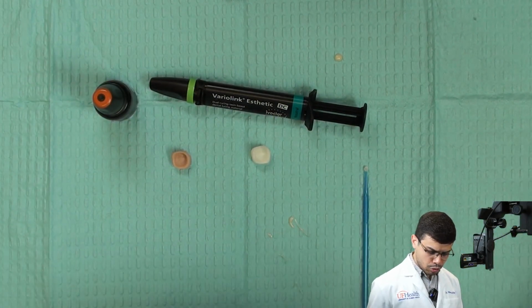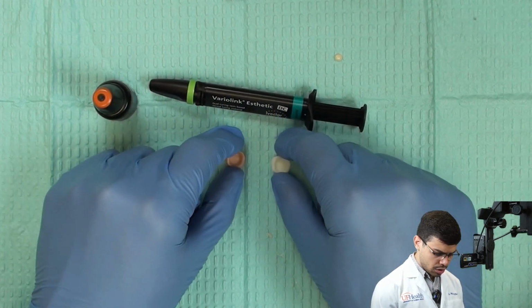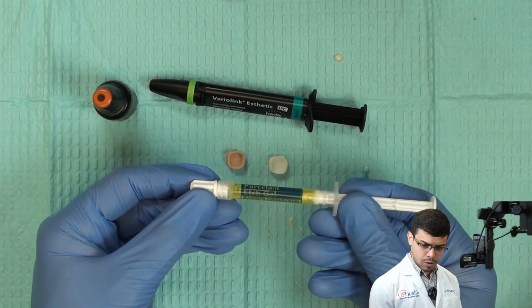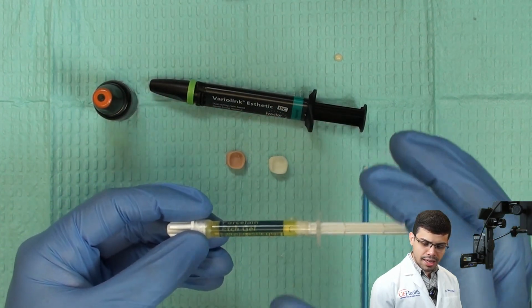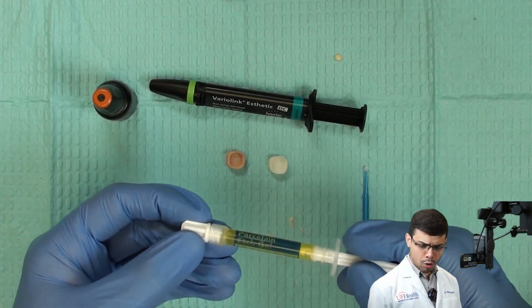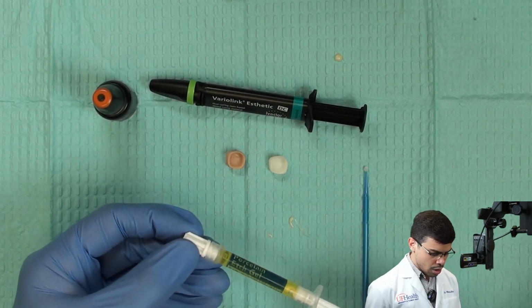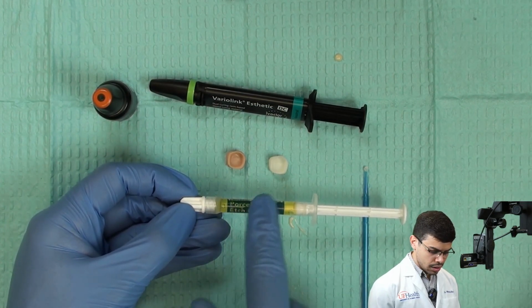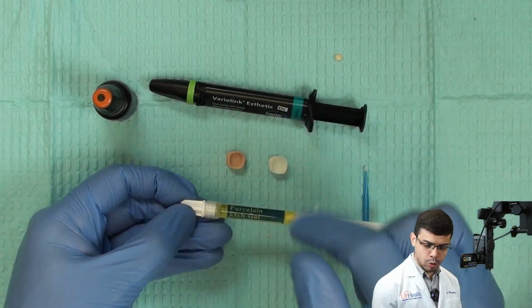Now, I also have to decide which type of surface treatment we're gonna do on these crowns. If you think about glass ceramics, they require what we call etching gel, all right? That will, of course, remove part of the glass of the ceramic and leave some crystal particles behind, so you can create a bonding to it. So it will basically increase the surface energy of that material. The etching only goes to the glass ceramic, because if you have a zirconia polycrystalline ceramic, you don't have the glass to be etched. So you have to sandblast.